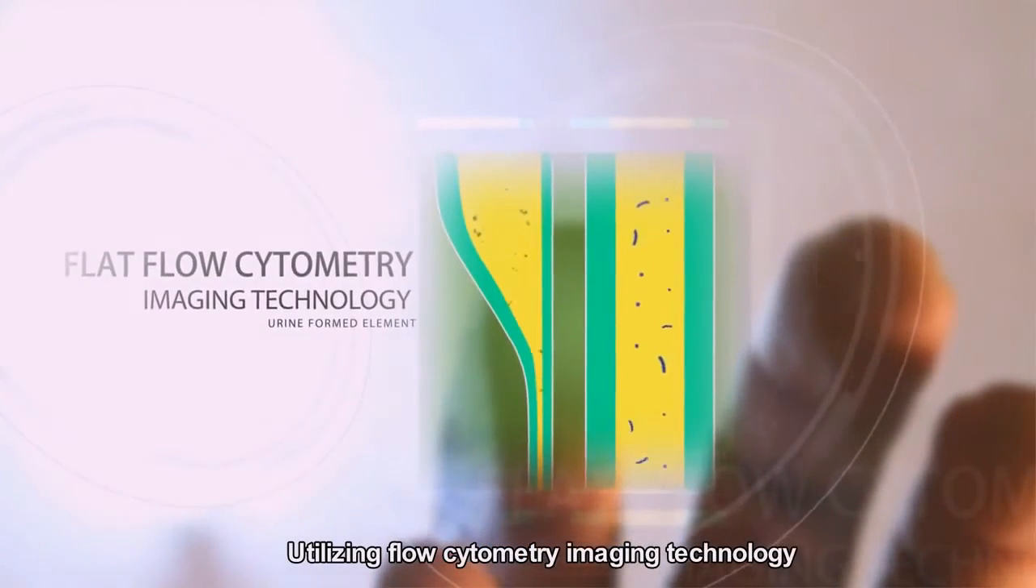Advanced test principle. Utilizing flow cytometry imaging technology, the FUS-2000 provides high-resolution urine sediment images. This proven technology offers real images for automatic identification, manual visual verification of the results, as well as effectively eliminating the need for centrifugation and staining.